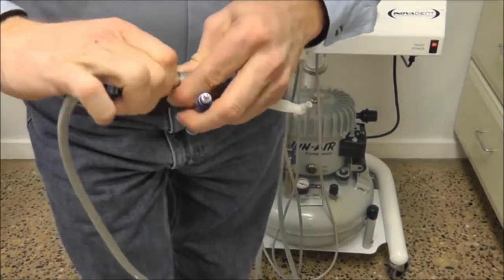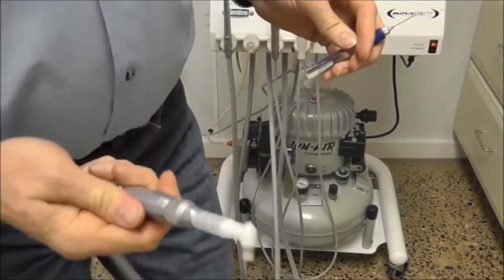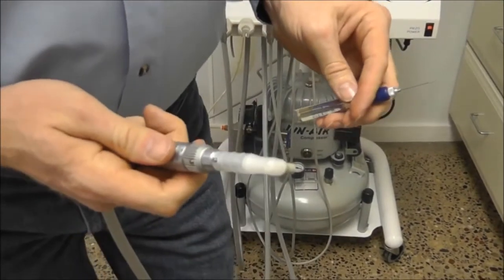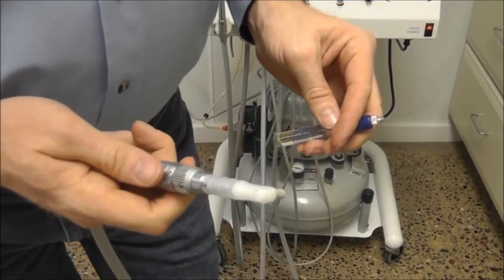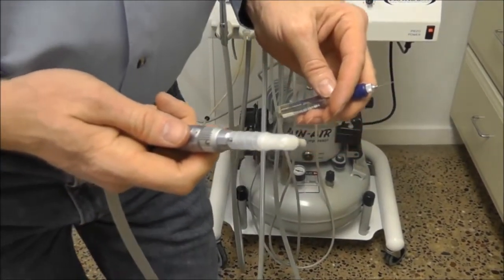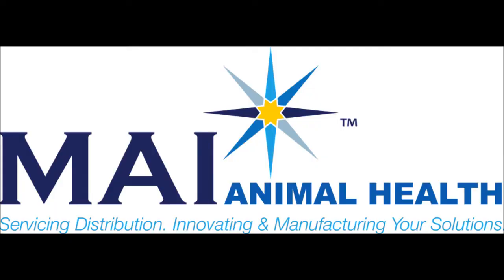Again, press on the foot pedal to run that into the low speed hand piece. Then press on the other end piece.